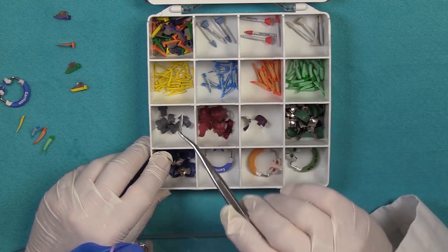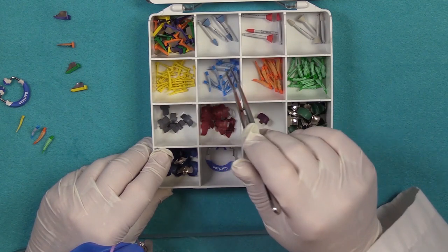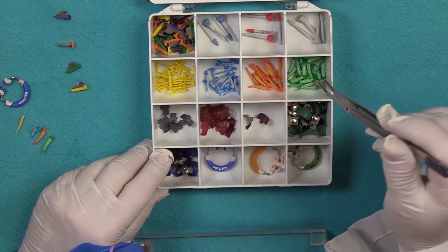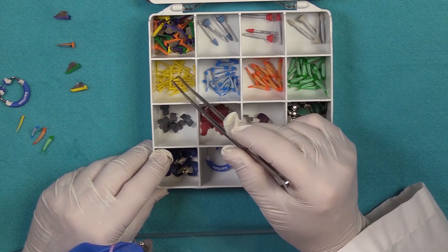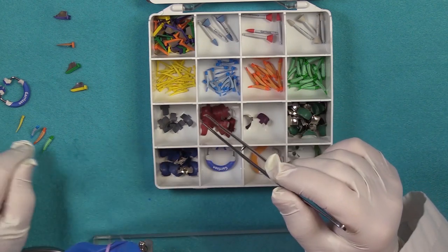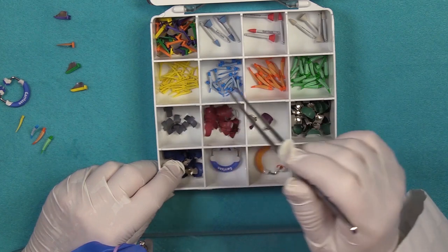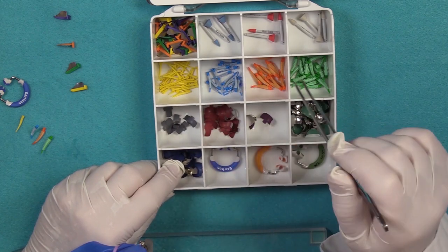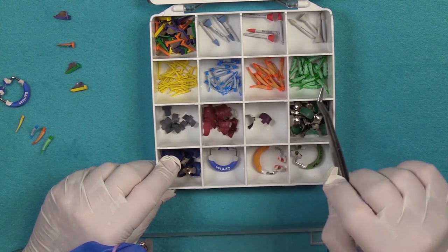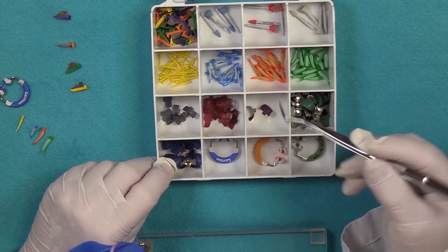You've got your polishing cups. And then we have our wedges. The wedges are designed with a material that's rubberized, and they have little filaments that help keep the wedge into place. You have different sizes depending on how wide you need your wedge to be and the contact issues.